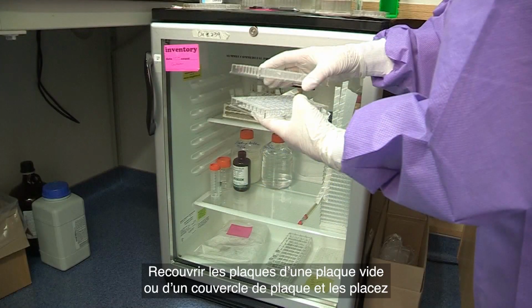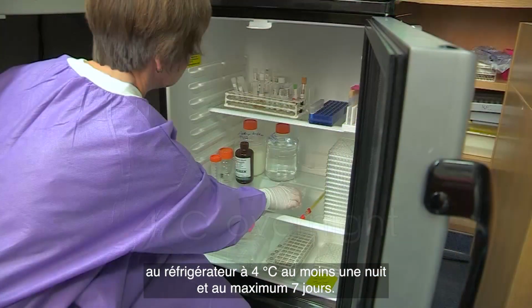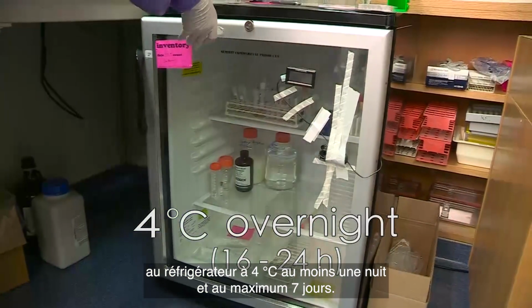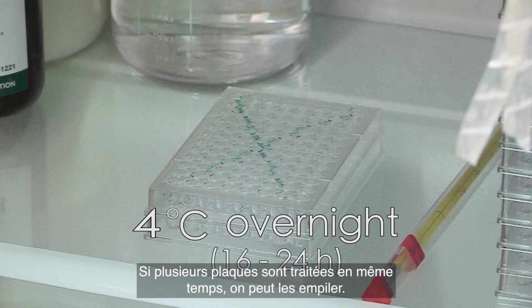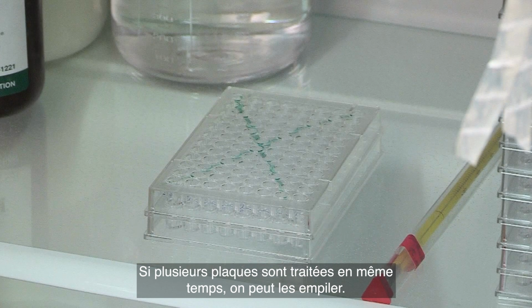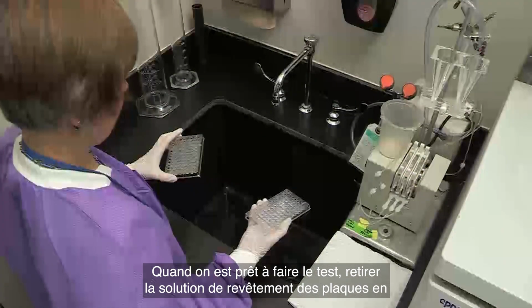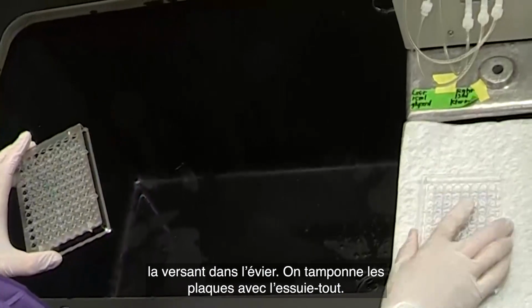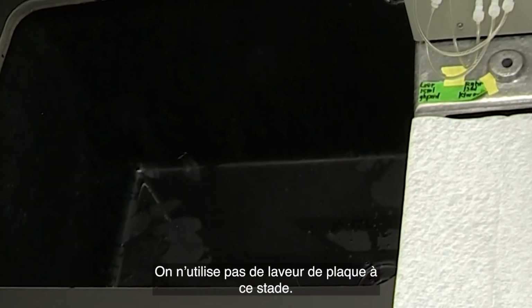Cover the plates using an empty plate or plate cover and place in the refrigerator at 4 degrees C for a minimum of overnight and for a maximum of 7 days. If multiple plates are being processed at once, it is okay to stack the plates. When you are ready to run the test, remove the coating solution from the plates by dumping it into the sink and blotting the plates on paper towels. A plate washer should not be used for this step.